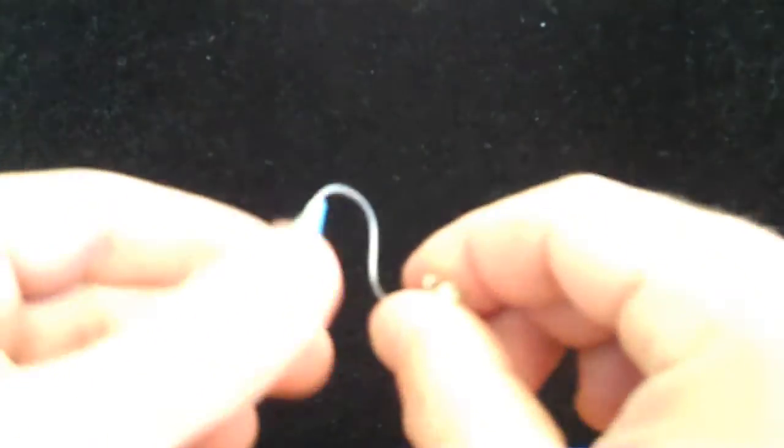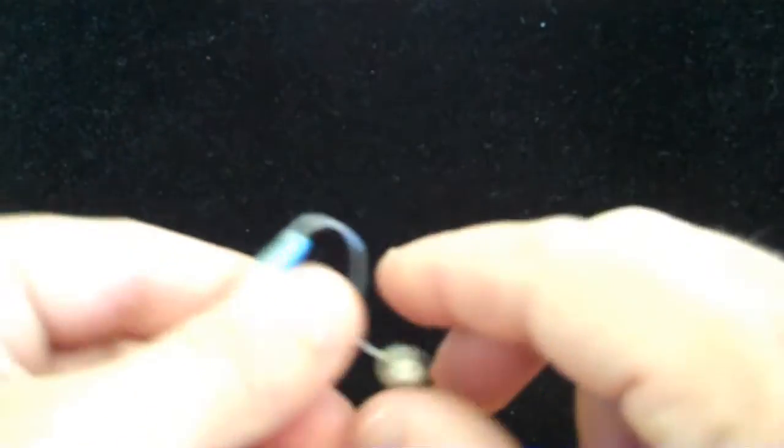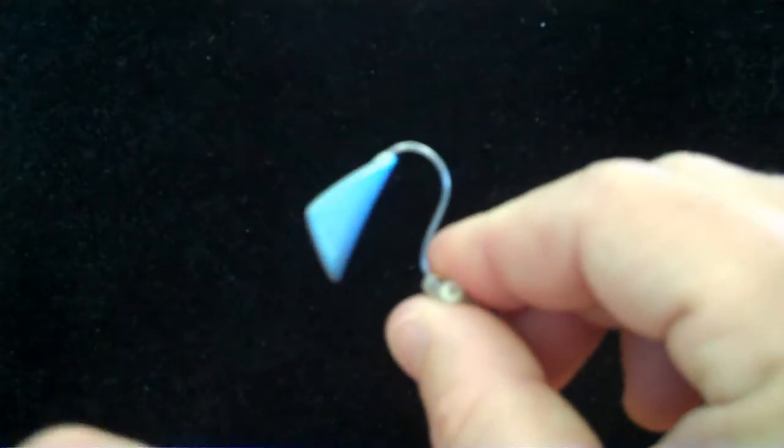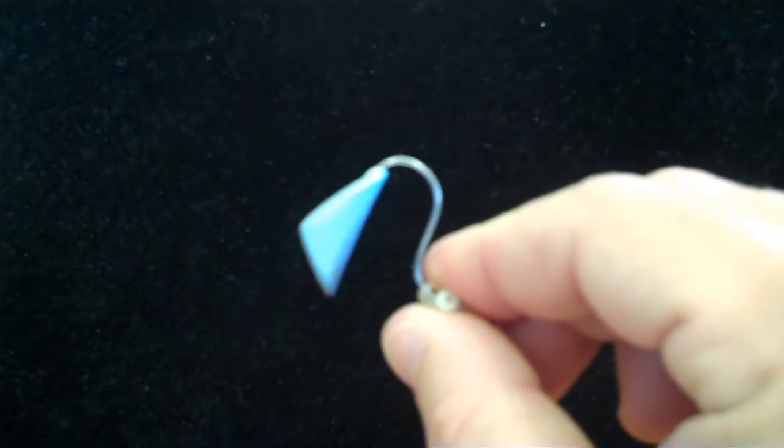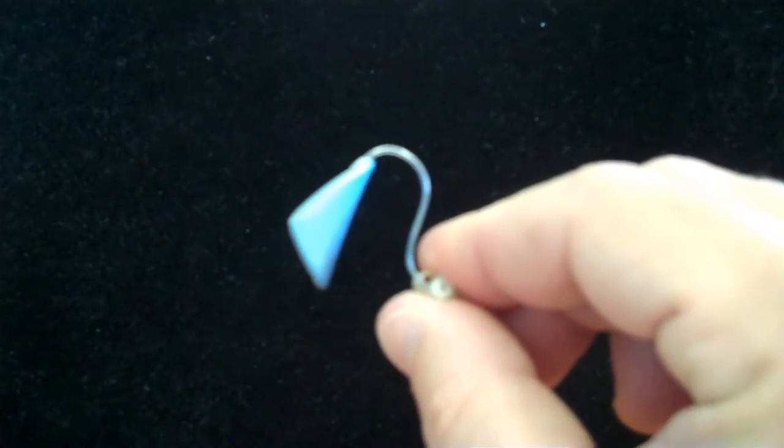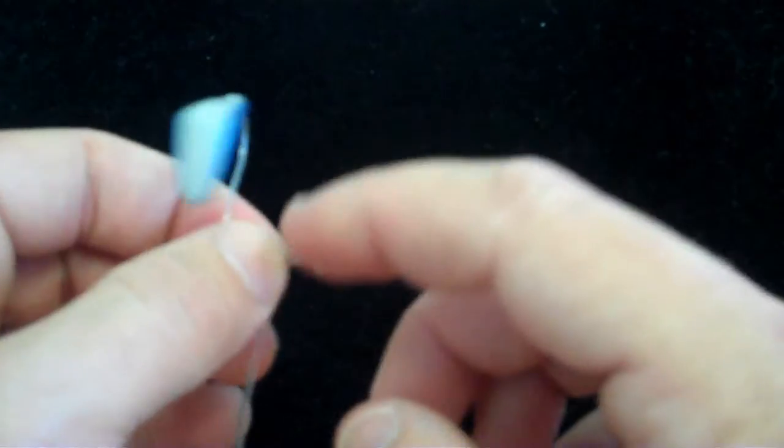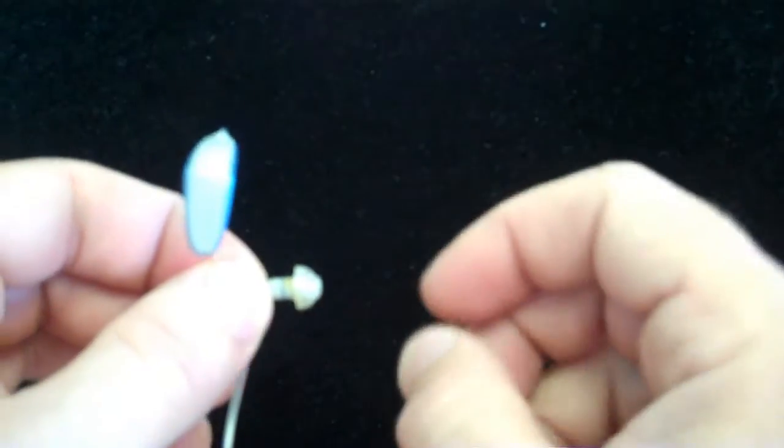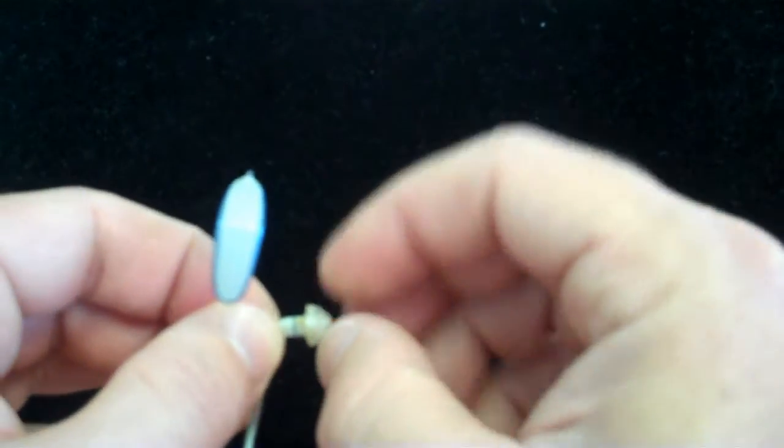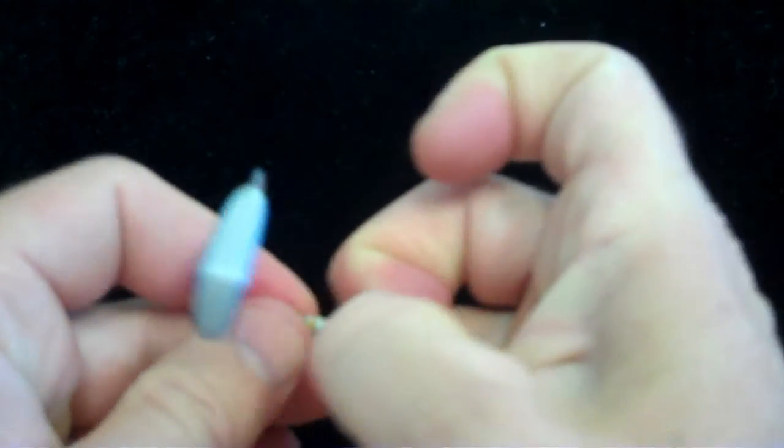A similar arrangement from another receiver in the ear style hearing aid is this one right here from another hearing aid company called Oticon. Once again, non-custom dome on the end. We pinch just the very tip and remove.